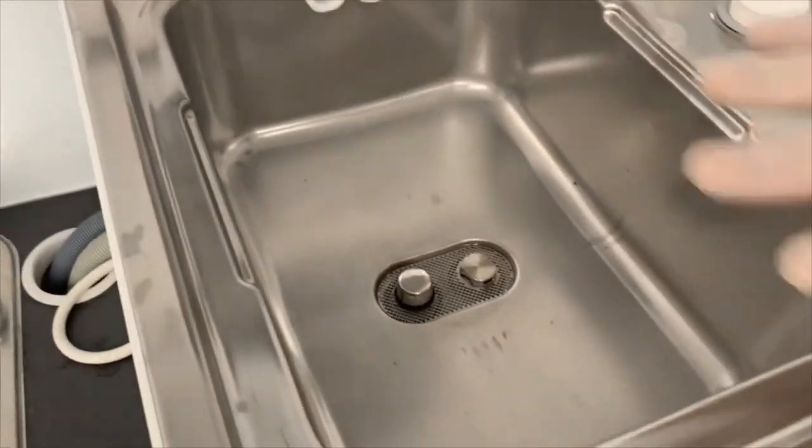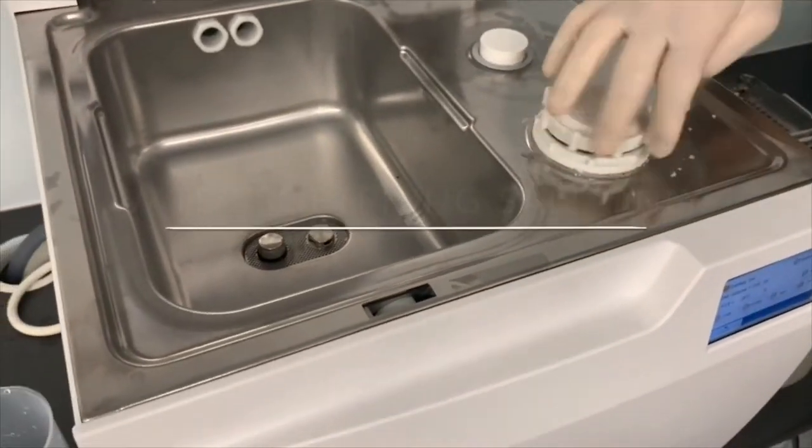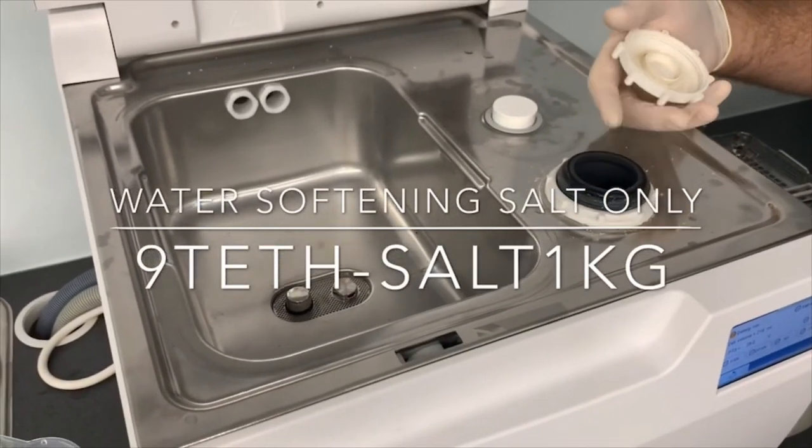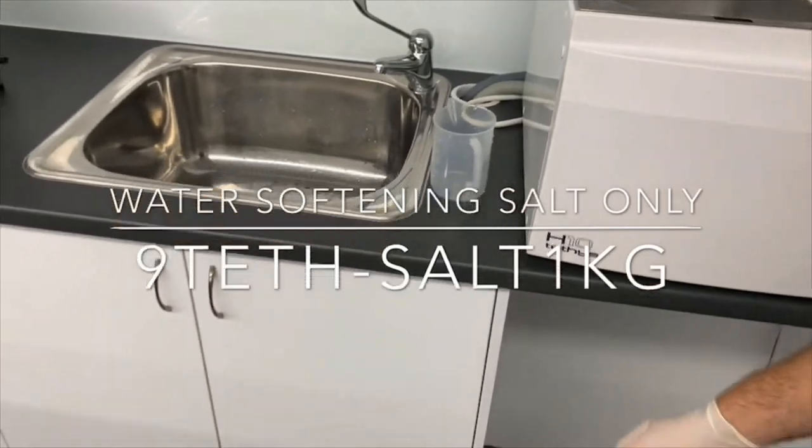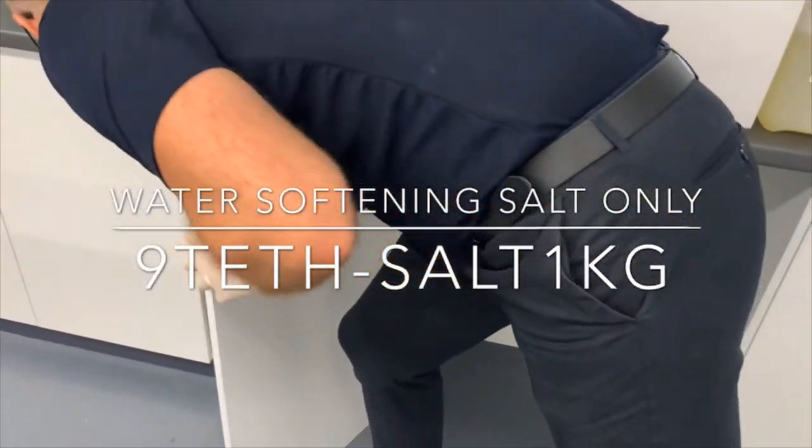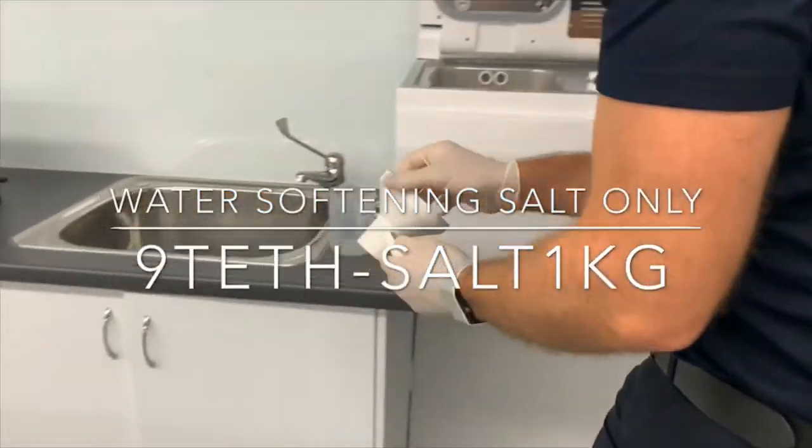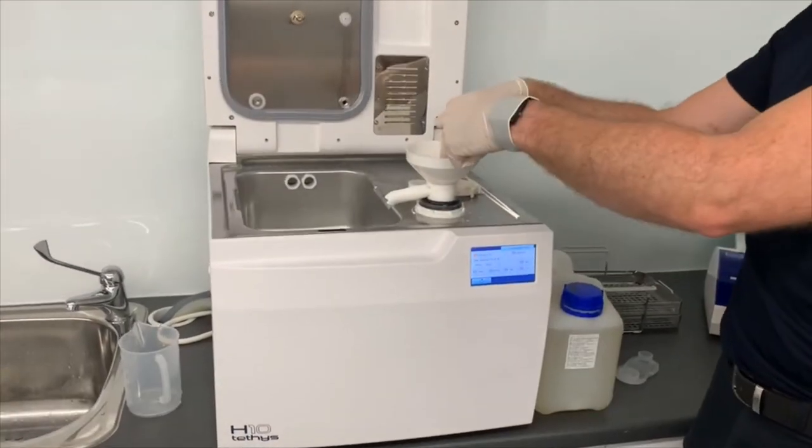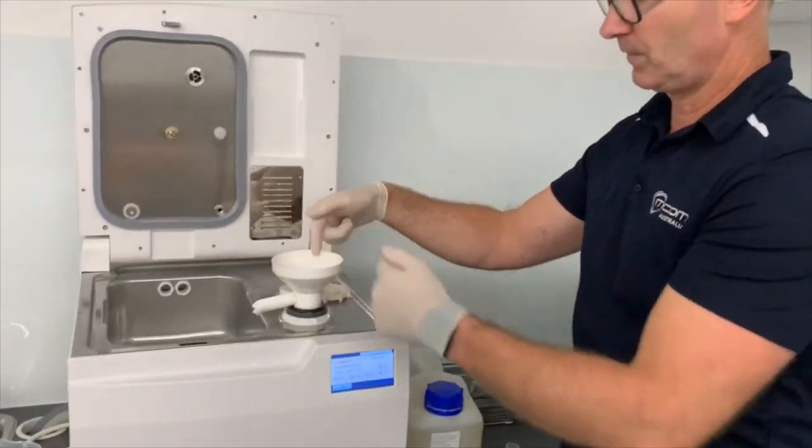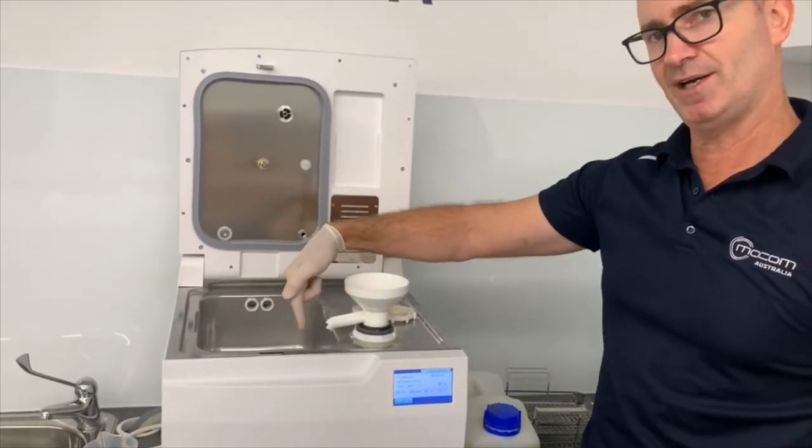Give the unit a good wipe down. You could use this as an opportunity to top your salt up. With the salt, it comes with a funnel. I might just grab it out of this cupboard here. So it's a special funnel that allows you to fill salt into the reservoir. And it displaces water out the side of the slide.